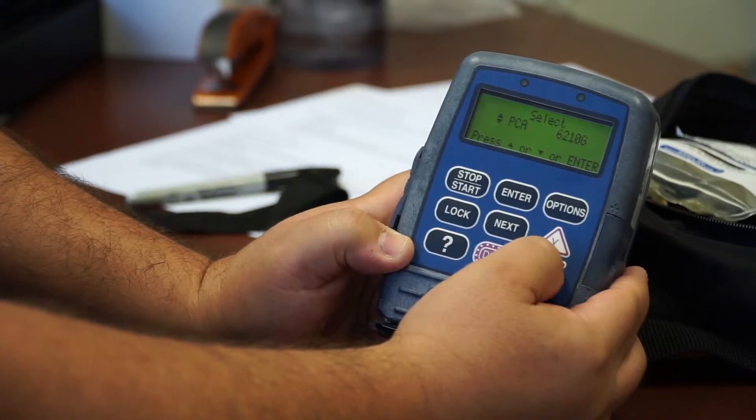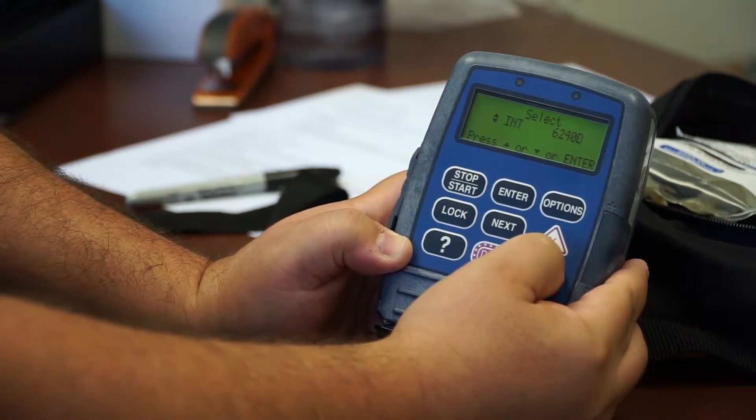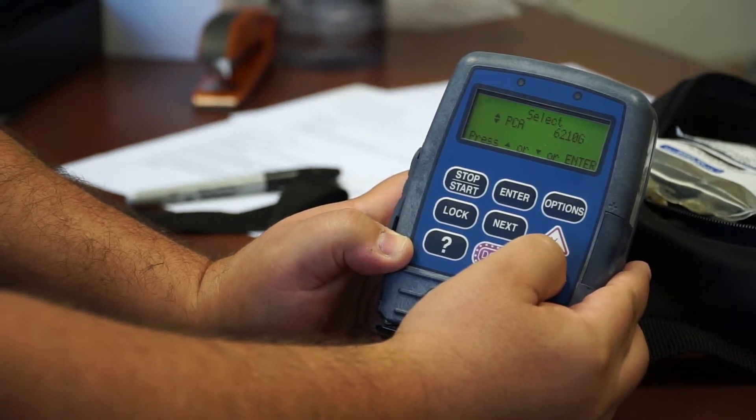Right now, it's currently in PCA mode. And then continuous mode, TPN mode, intermittent mode, and then PCA mode again. So, you would select your mode.